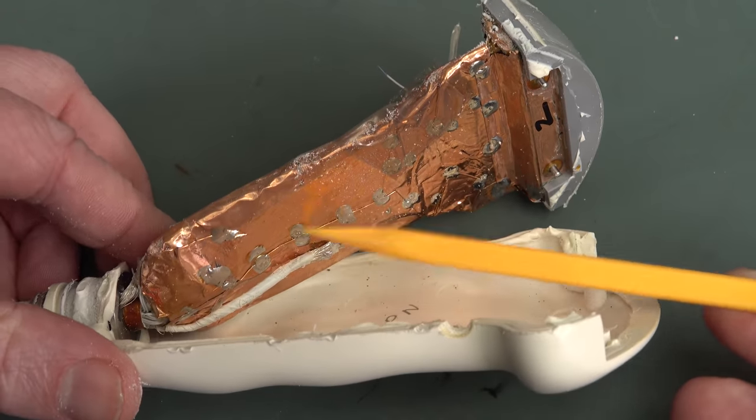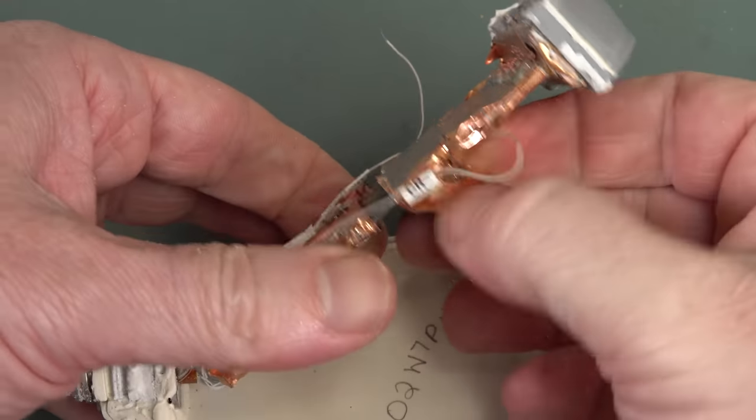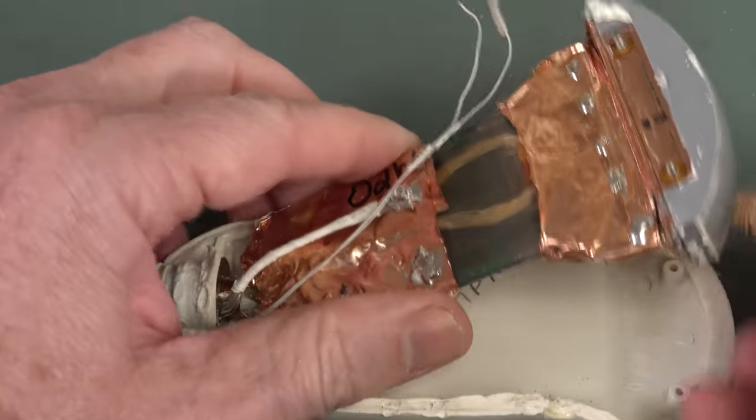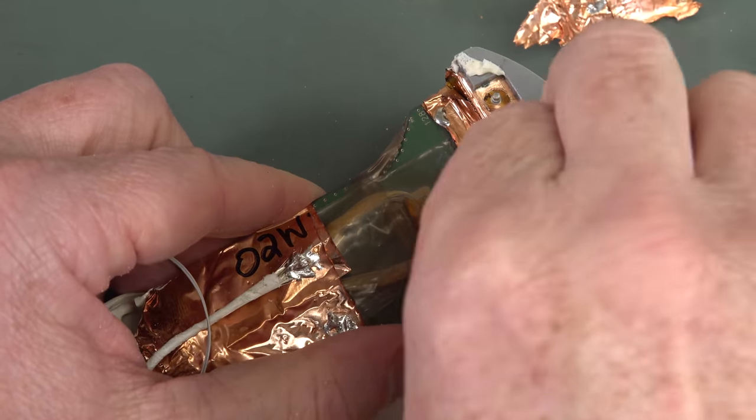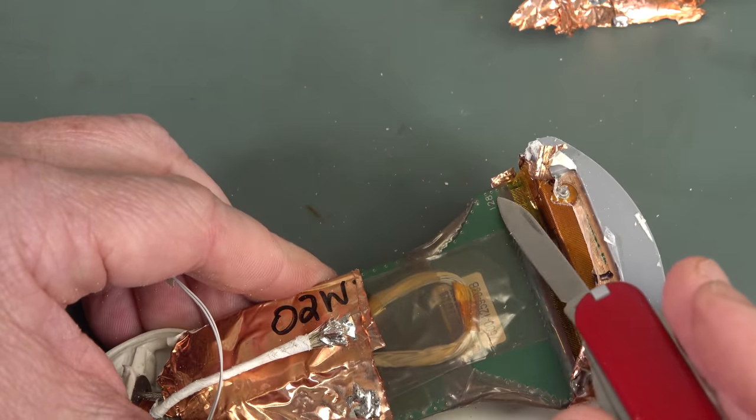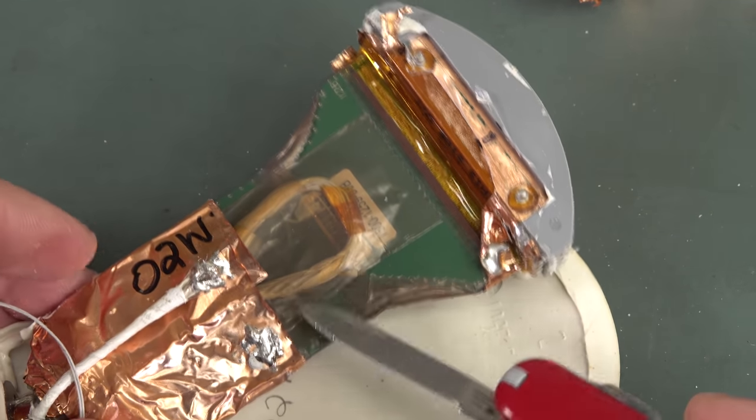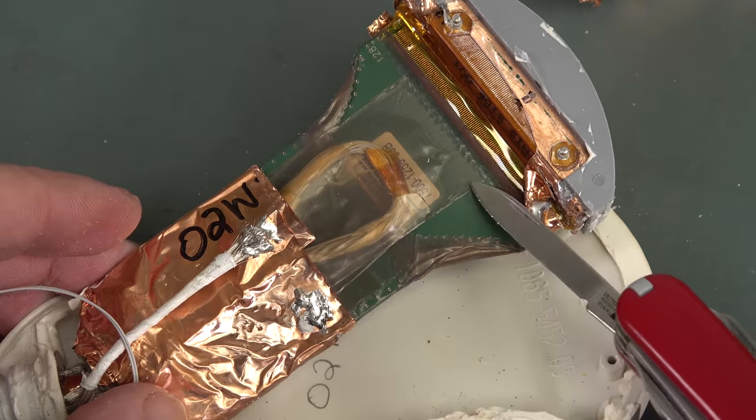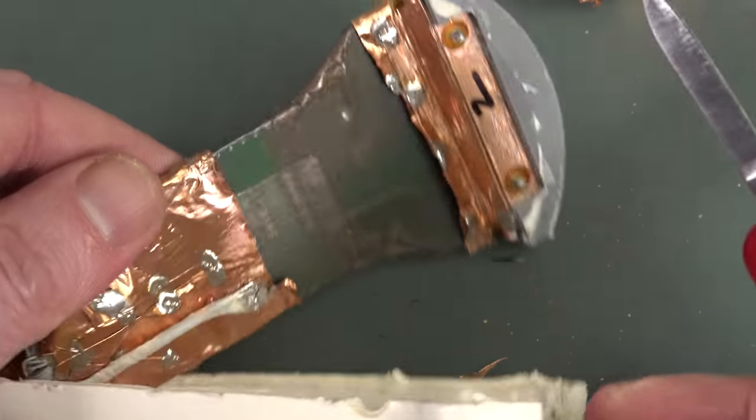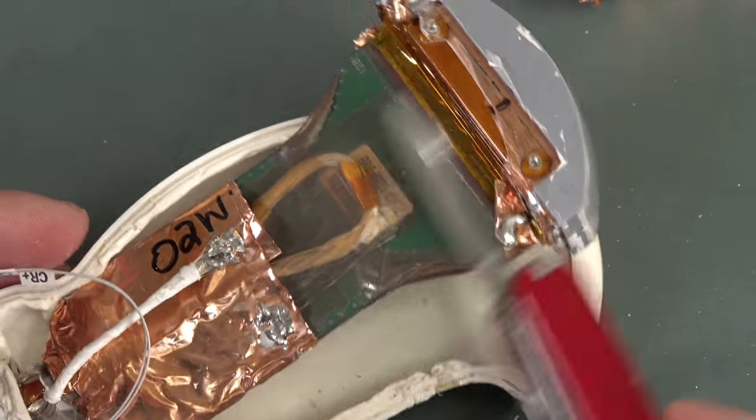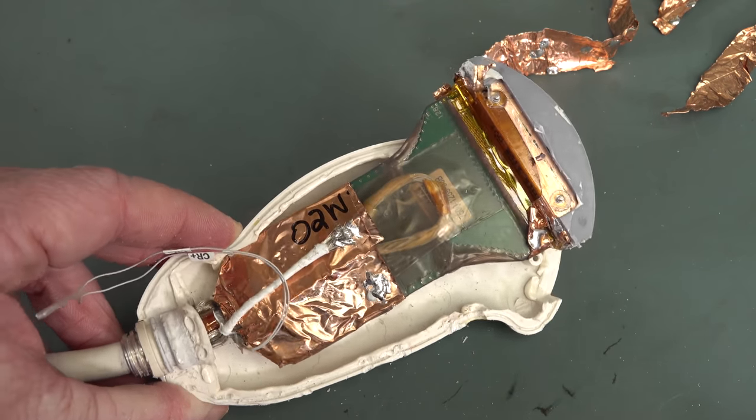Why they didn't do it as a metal case - maybe it was too heavy or something? Or the copper tape was just better and cheaper and simpler. I'm not sure if there's anything on that PCB. I think it's just termination. Let's get this tape off. Just gonna peel it off. I don't see any circuitry on there. All I see is a bunch of wires looping back, so that's just for termination reasons. I can see via stitching around the outside of the PCB. It's gonna be one big ground plane. They're gonna terminate the connections in here, run as shielded by the top and bottom ground plane. And then for good measure they've put the copper tape on top.